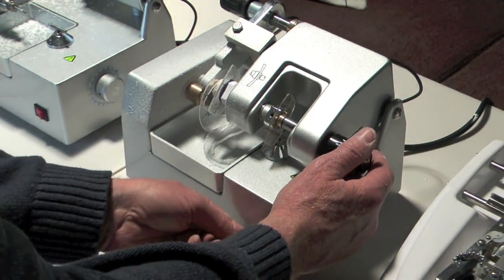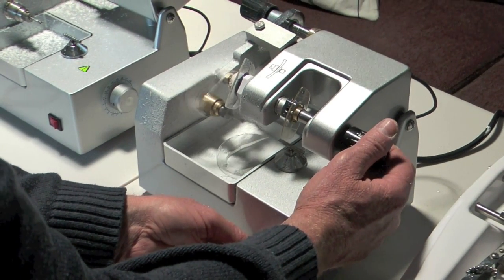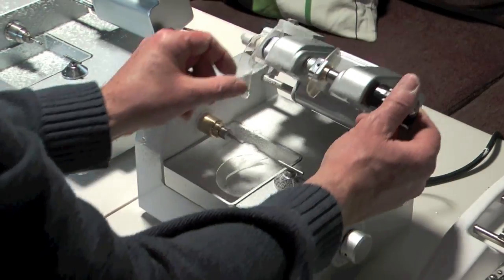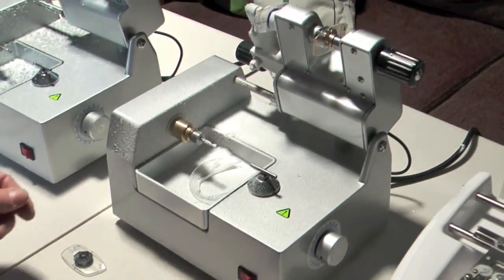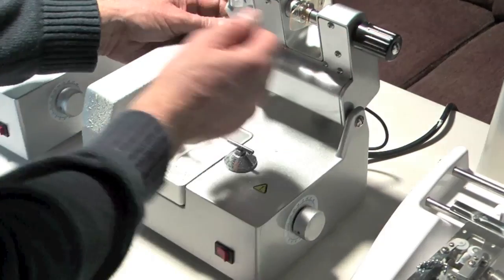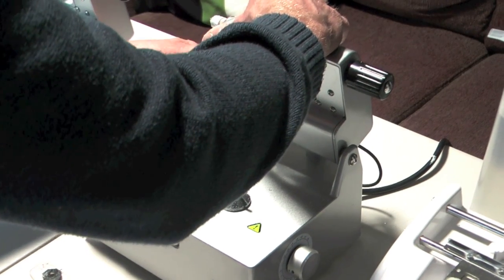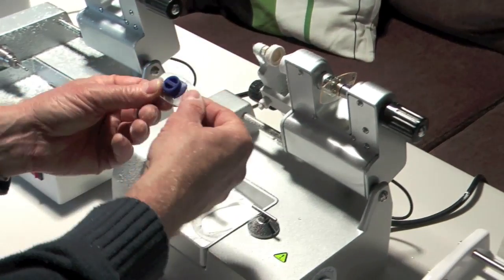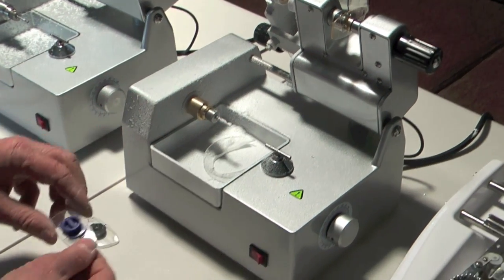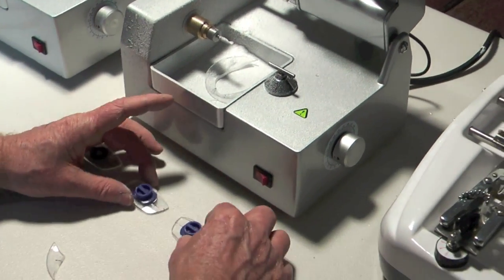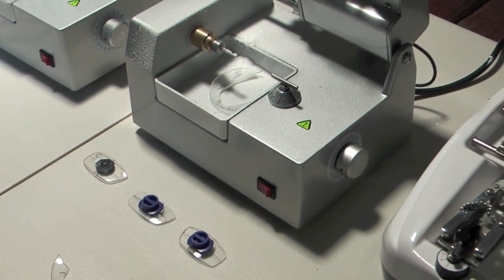Even less than a minute to cut the lens. That's it. We turn it off. We'll take it off and then turn it off. And there we have the right lens is now cut. That one worked nicely. And we've got both the right lens and the left lens.